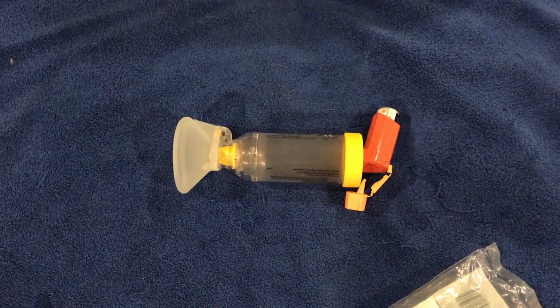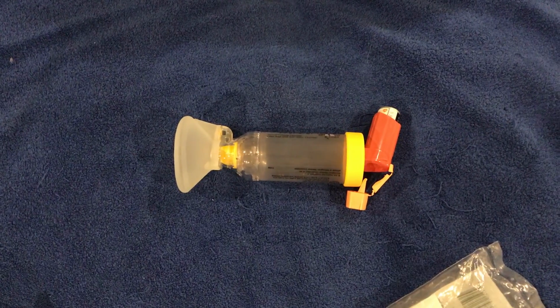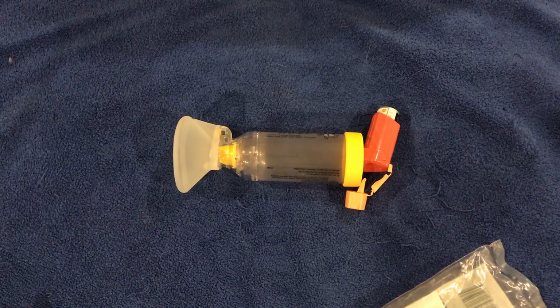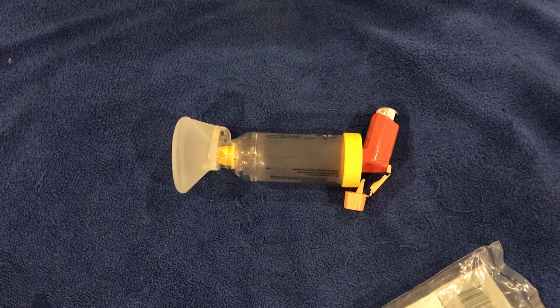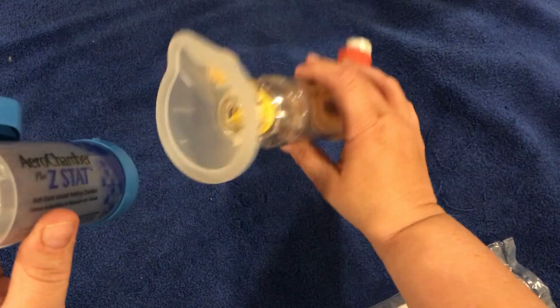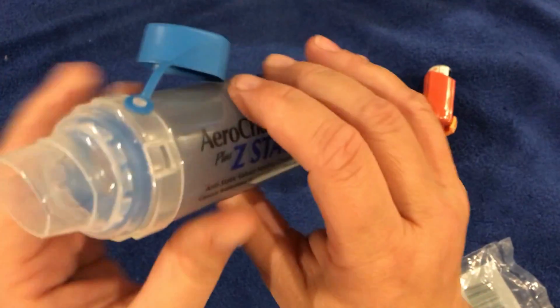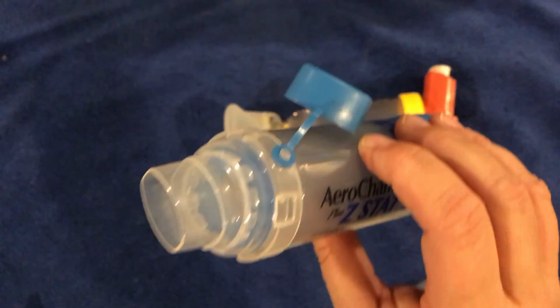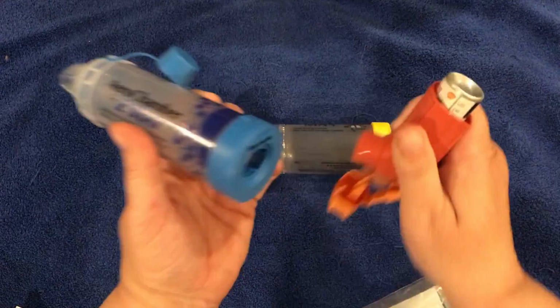What we have to explain to the patient is that he has to sit in a really comfortable position on a chair. And before he takes the medication, he has to exhale, take all the air from his lungs. He's gonna seal his mouth around this opening here. In the case of the child, he will put this one on his nose and mouth. But for an adult, he seals the mouth properly around the opening of the chamber.